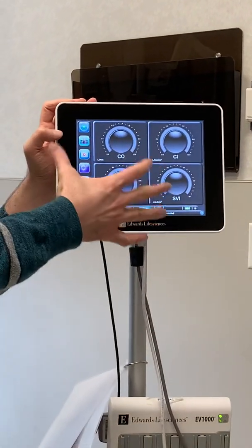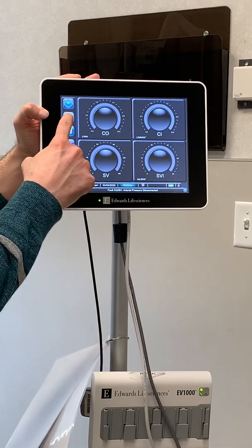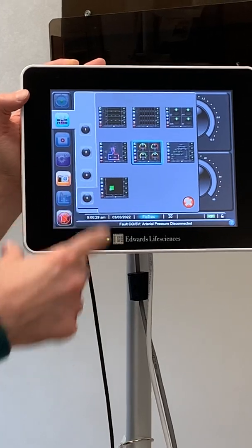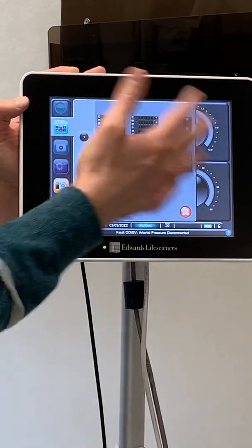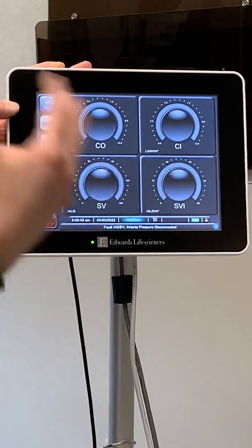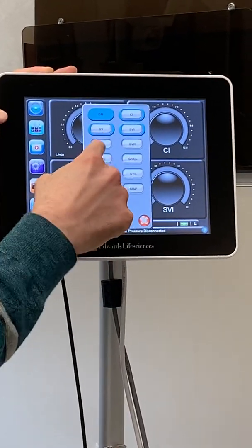This one turned on and it's already set up for the four parameters that we really would like to see, which are cardiac output and index, stroke volume, and SVI. You can change the parameters by clicking the second button here. Along the left side, select how many parameters you want to see — we always want four. The screens in the middle show you what your cockpit is going to look like. I really like this particular view because it's got gauges showing green, yellow, or red — whether you're in a good place or not. If you need to change the parameters, just click the individual boxes and change them.